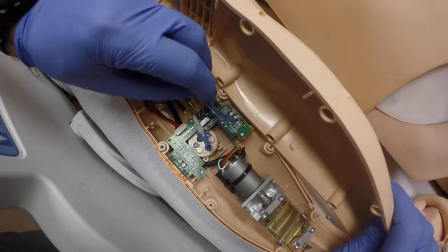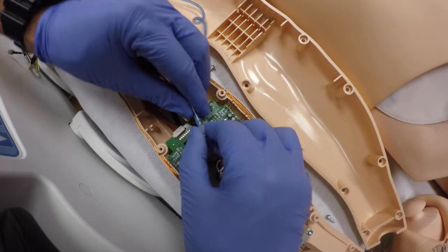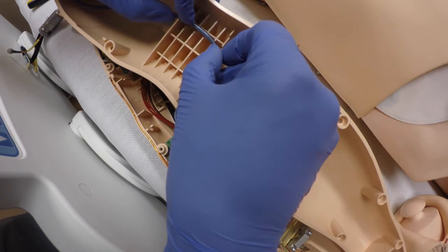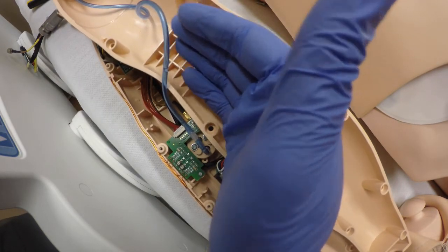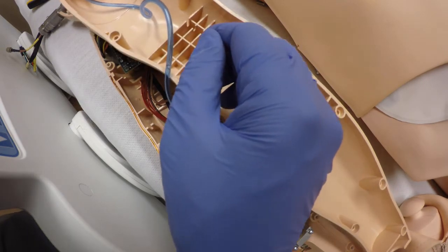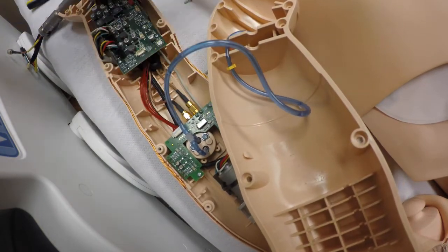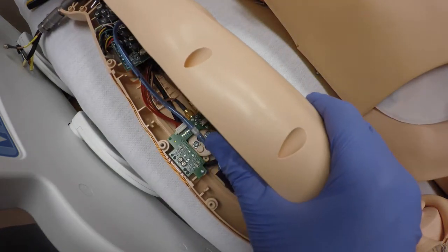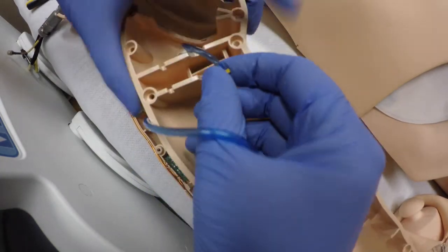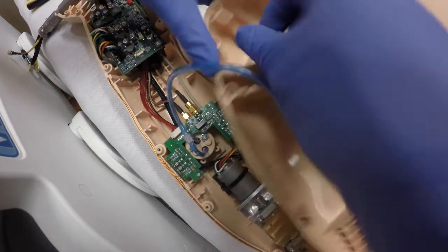I'm going to see what my alignment looks like — I want just enough hose there. That'll be long enough, so reattach that. I don't recommend snaking the hose back up into this part where it's supposed to be held, because of the connections where it is narrow there and the hose expands because of pressure — it can weaken it right there. Actually, today we're going to drill a hole through here to allow this hose to be in this spot. You can see it's almost like a pinching point, so I'm going to drill a hole through here and through here and just send that hose through that spot. I'll release it here first.